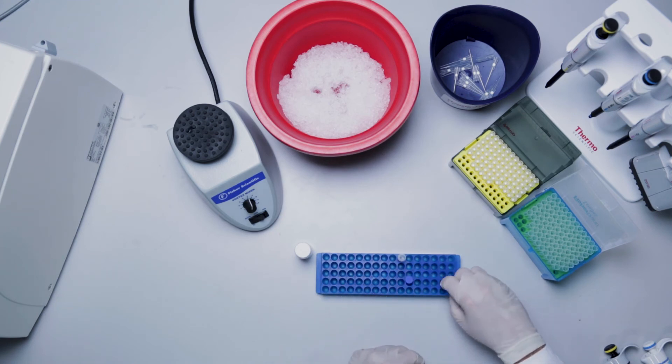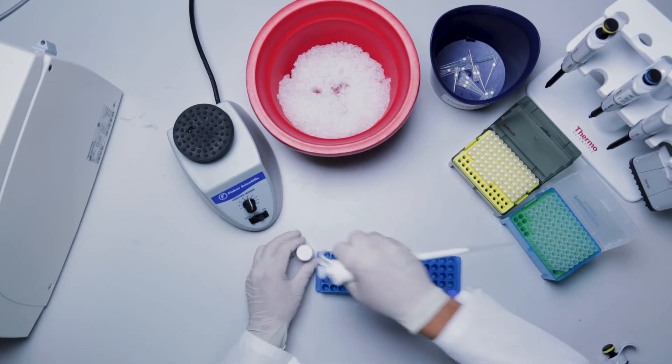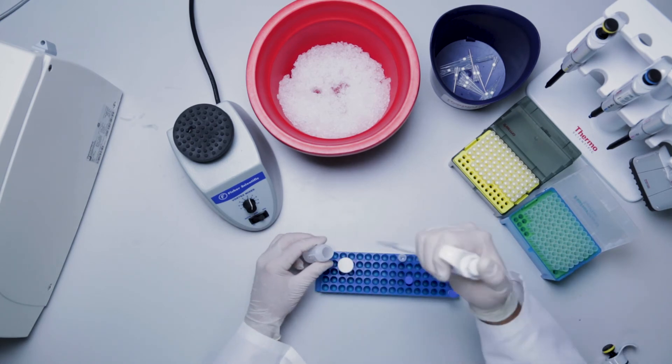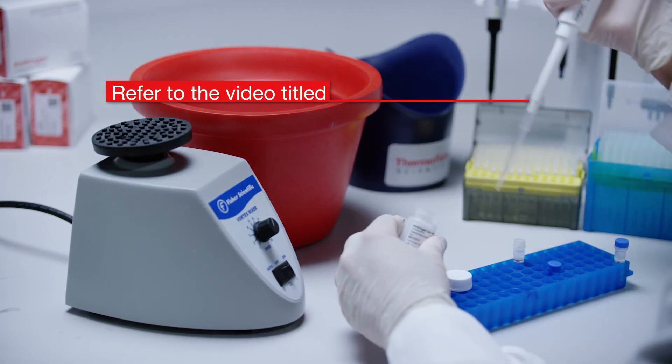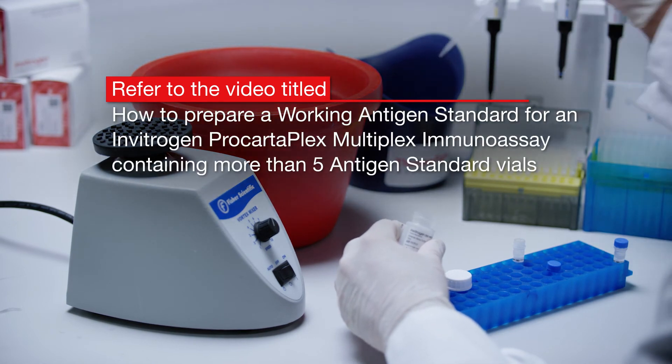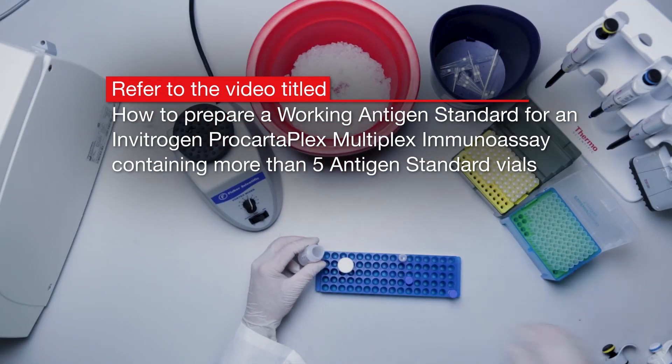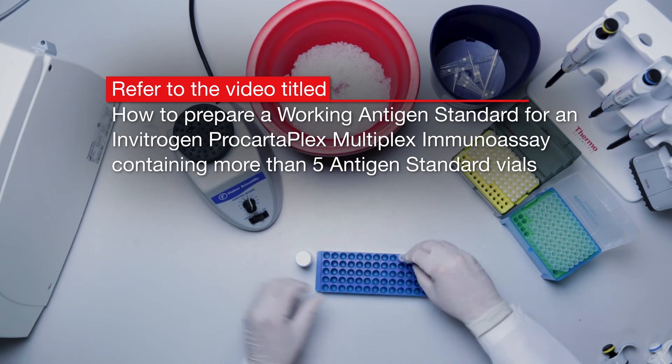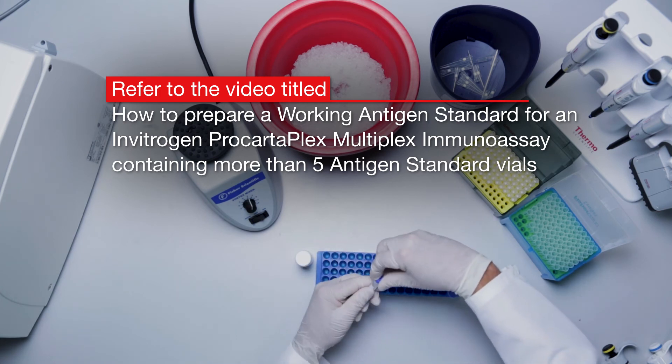For details on how to pool more than 5 antigen standard vials while not exceeding 250 microliters, refer to the video titled How to Prepare a Working Antigen Standard for an Invitrogen ProCartaPlex Multiplex Immunoassay Containing more than 5 antigen standard vials.